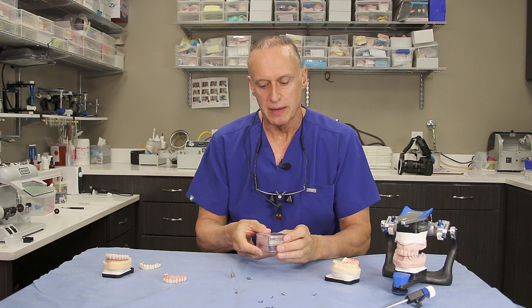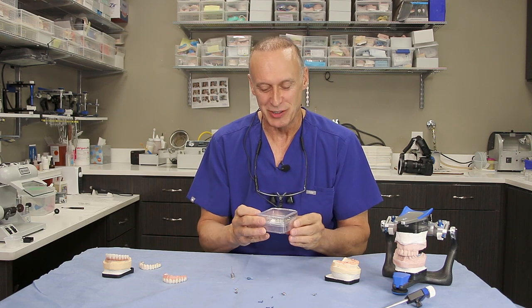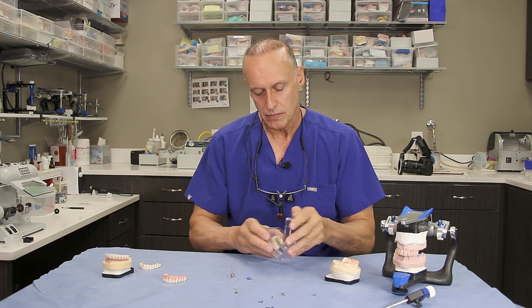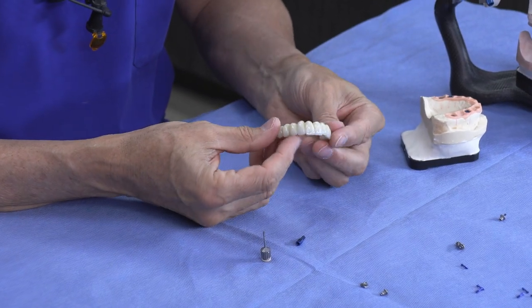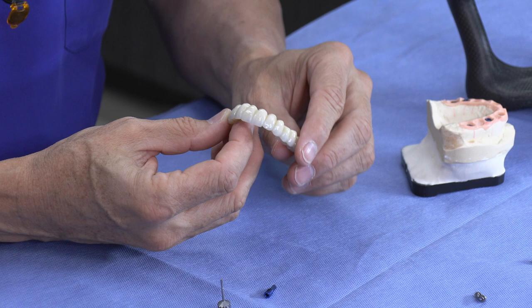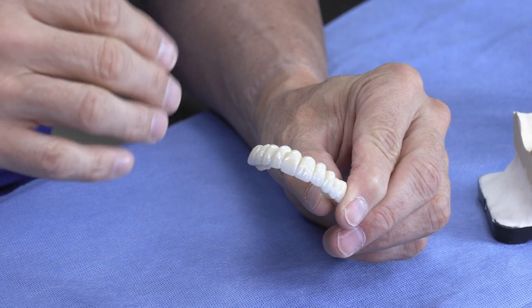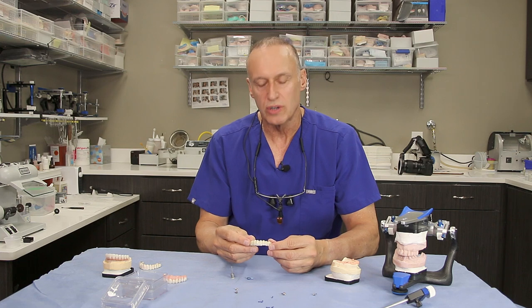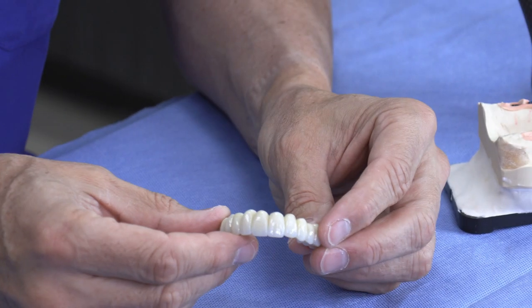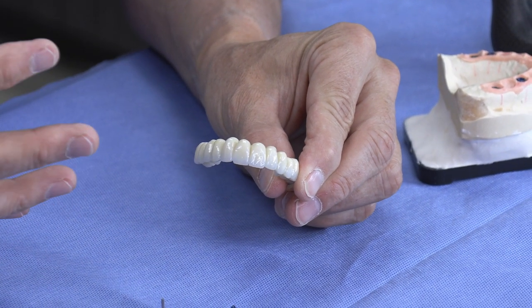I've talked about several different prostheses. I'm going to show you the implant bridge next — it comes in a jewel case. It's expensive so it should come in something that looks like jewelry. I say in my videos it looks, feels, functions, and cleans just like natural teeth or natural teeth that have bridges on them. In this raw form before it's actually ready to go in the patient's mouth, I want to point out some things about it that make it so much better than the all-on-four prosthesis.